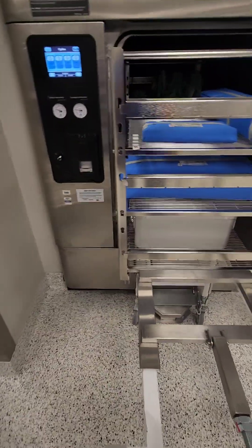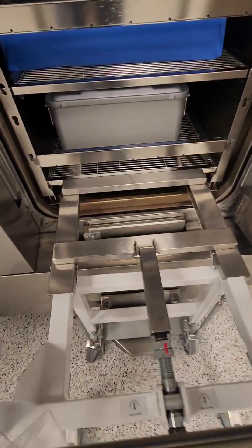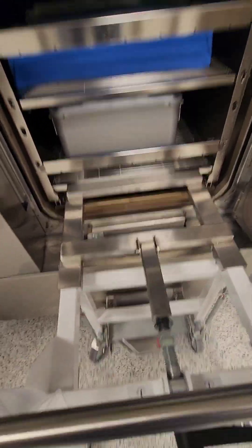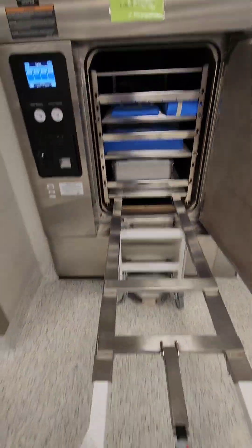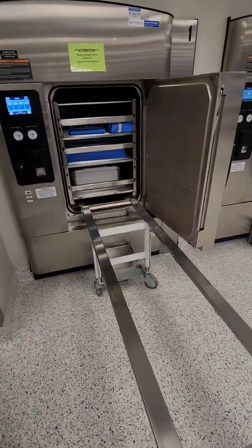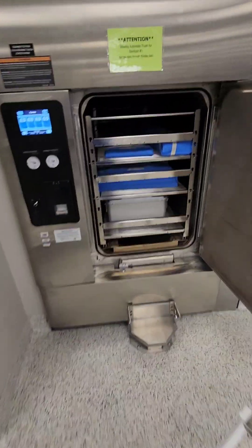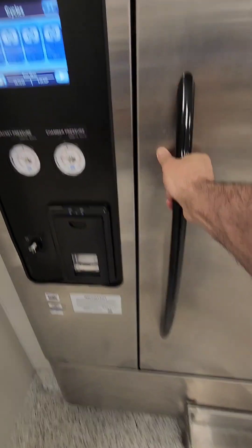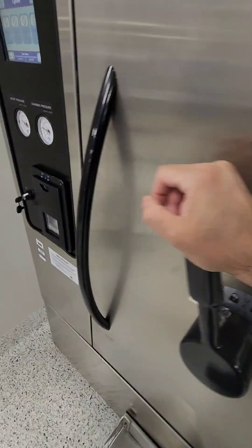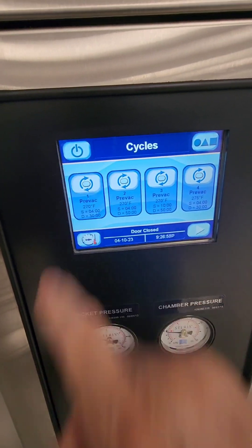Into the sterilizer we go. Make sure nothing is hitting the side. This is a crank-style rack, so we're going to crank it down until it's flush, then remove our rail and close the door. Lock it up. It was a 270/430 cycle.